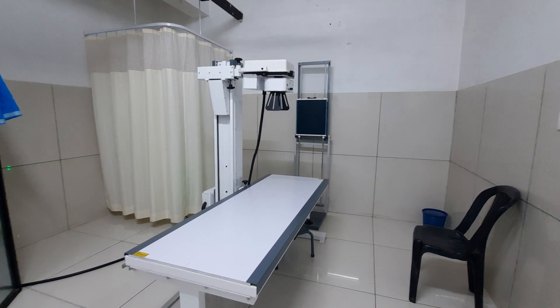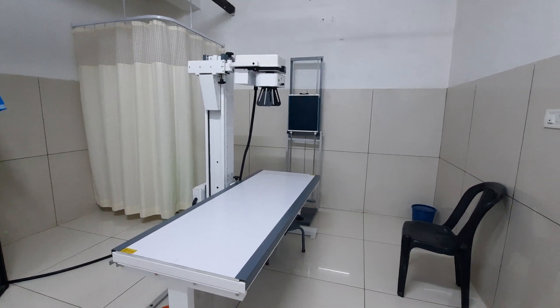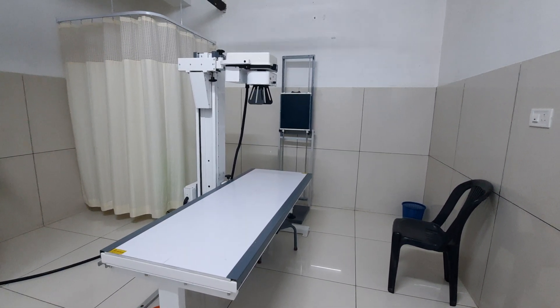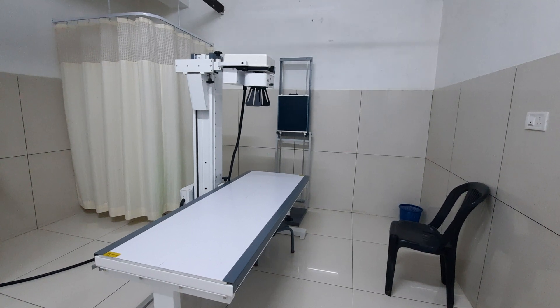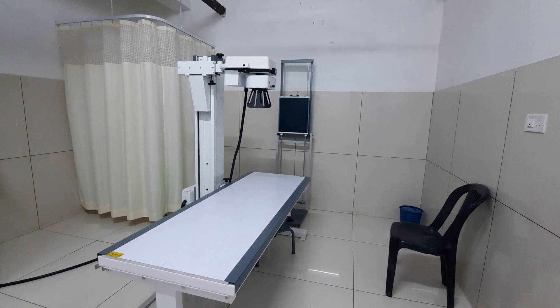In this video we are going to discuss about computed radiography, which is commonly used in most of the hospitals in India.